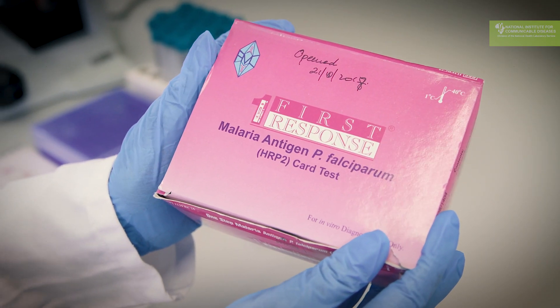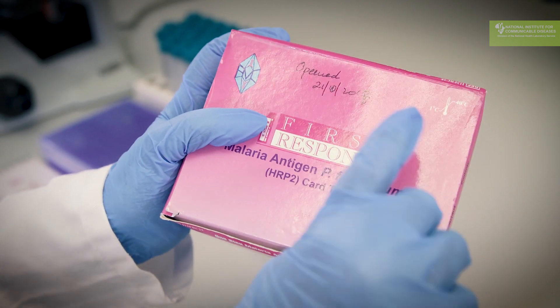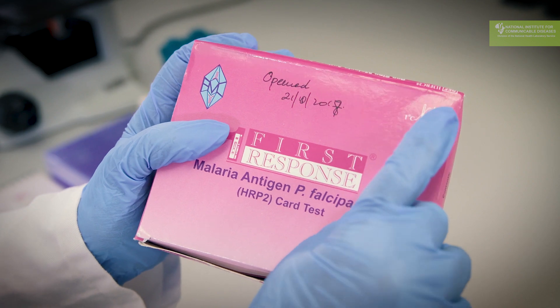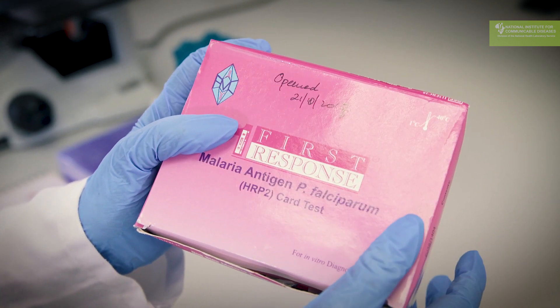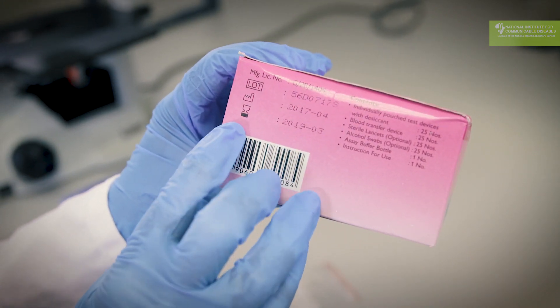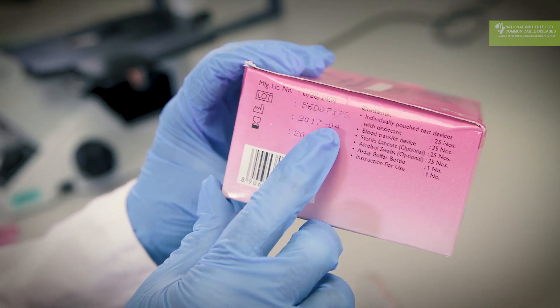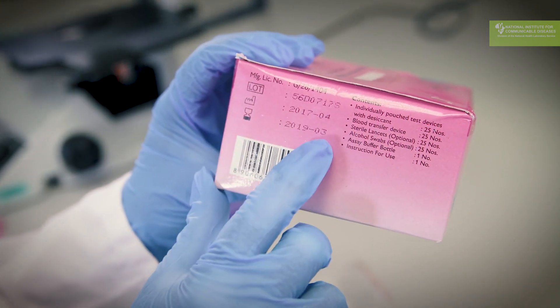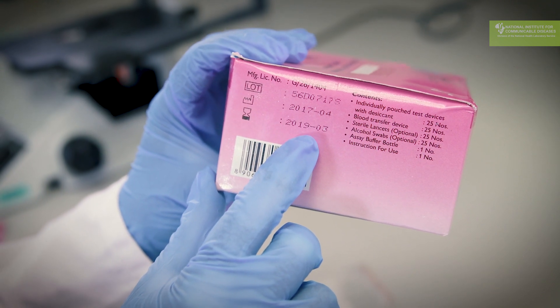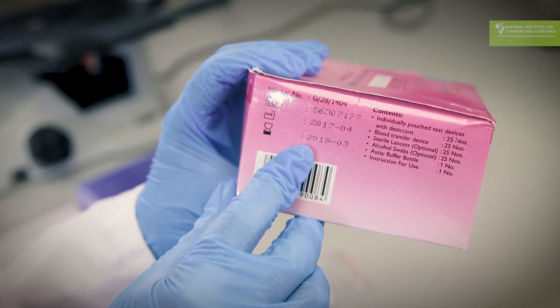When you get a First Response rapid diagnostic test box, you need to check two things: what the temperature range is — this test can be used from one degree to 40 degrees — and the expiry date, which is on the side of the box. This box shows it was manufactured in April 2017 and expires in March 2019, so these tests are still valid and you can use them.